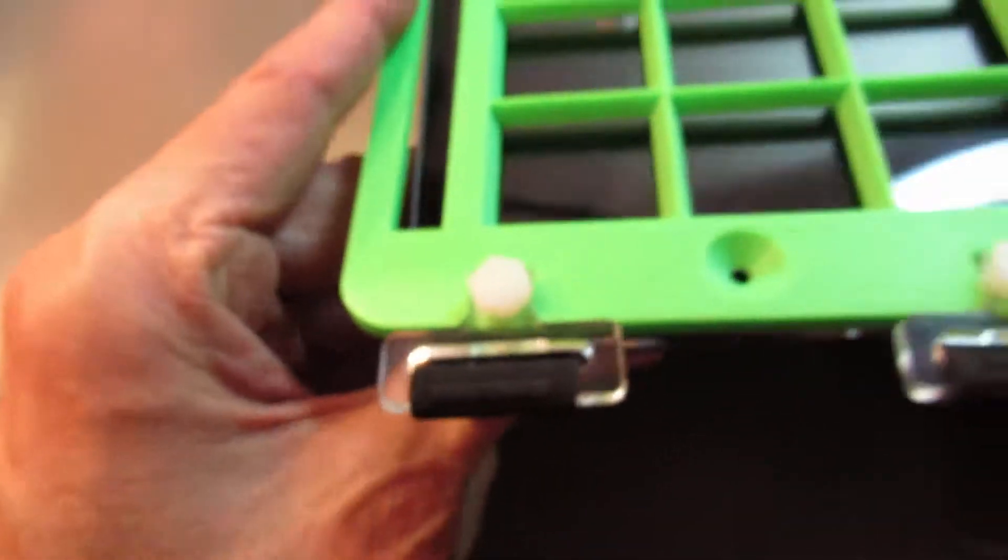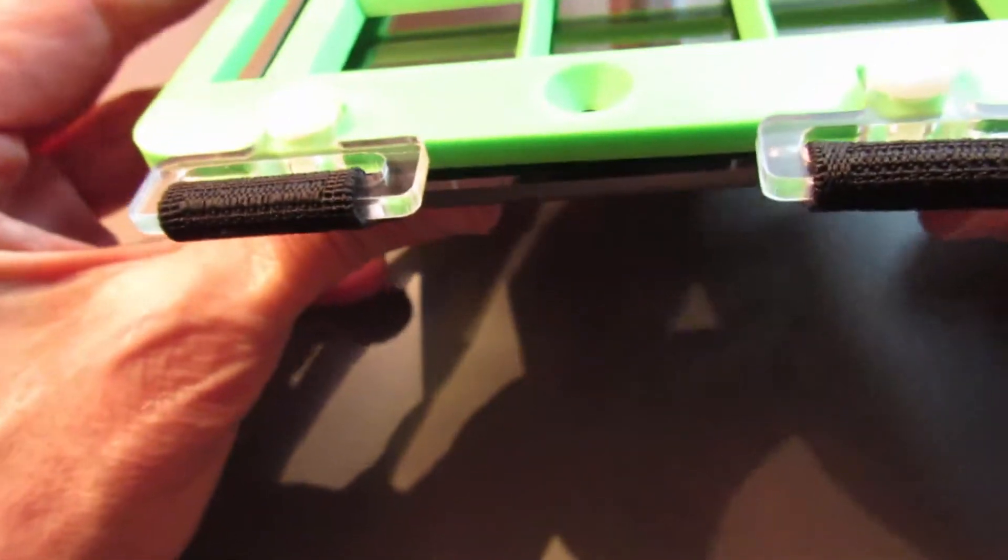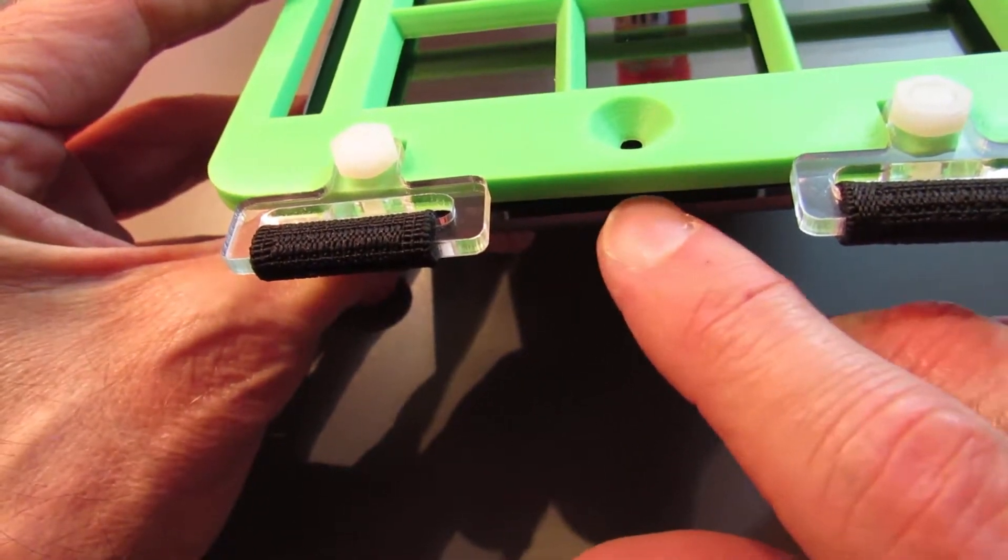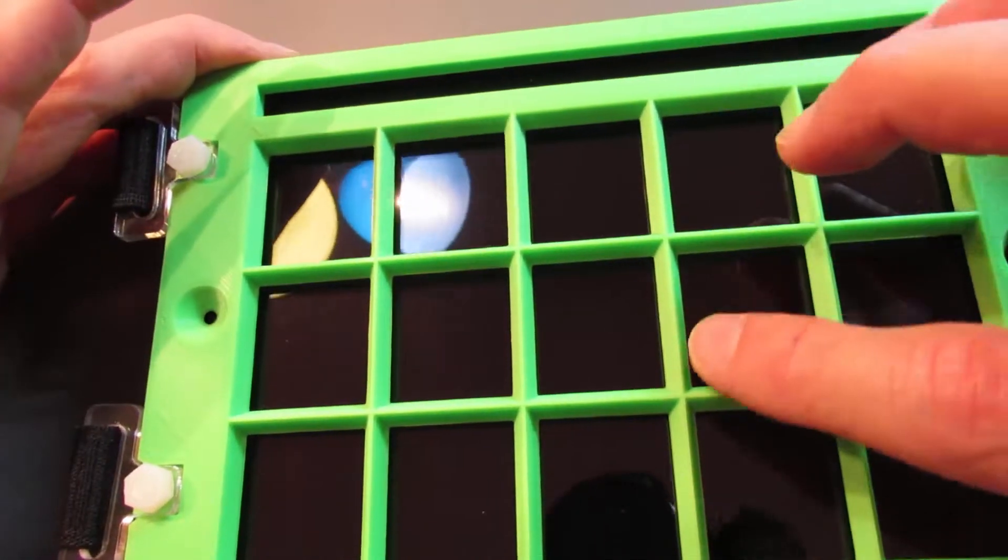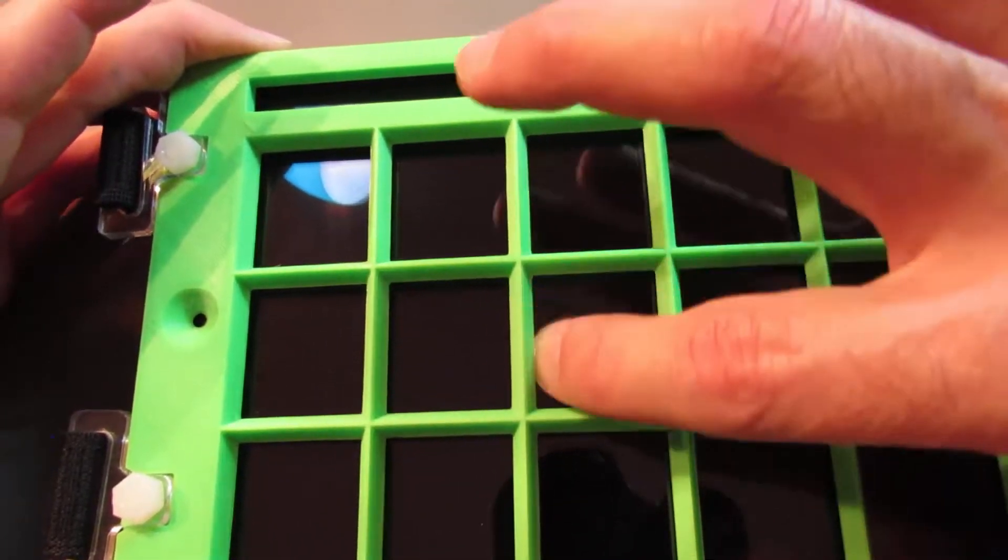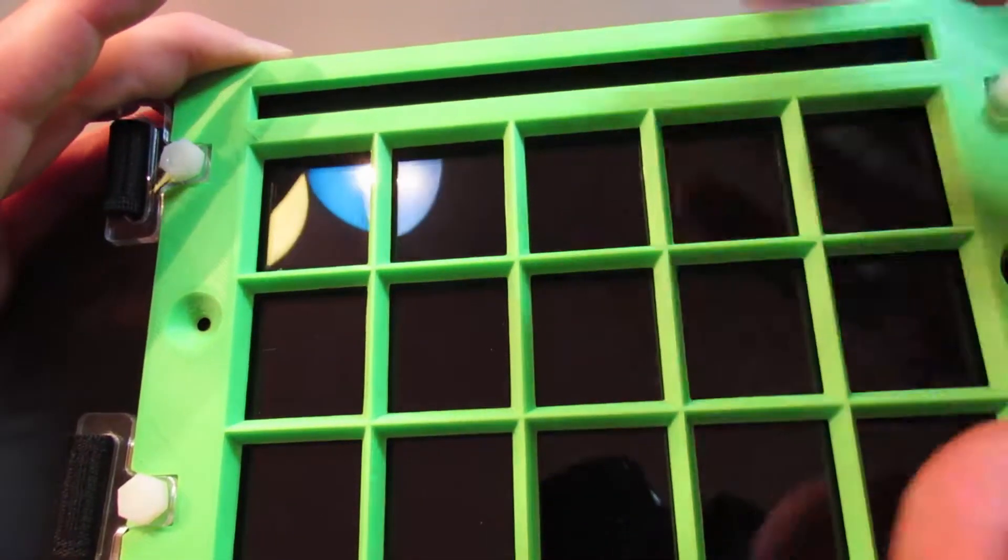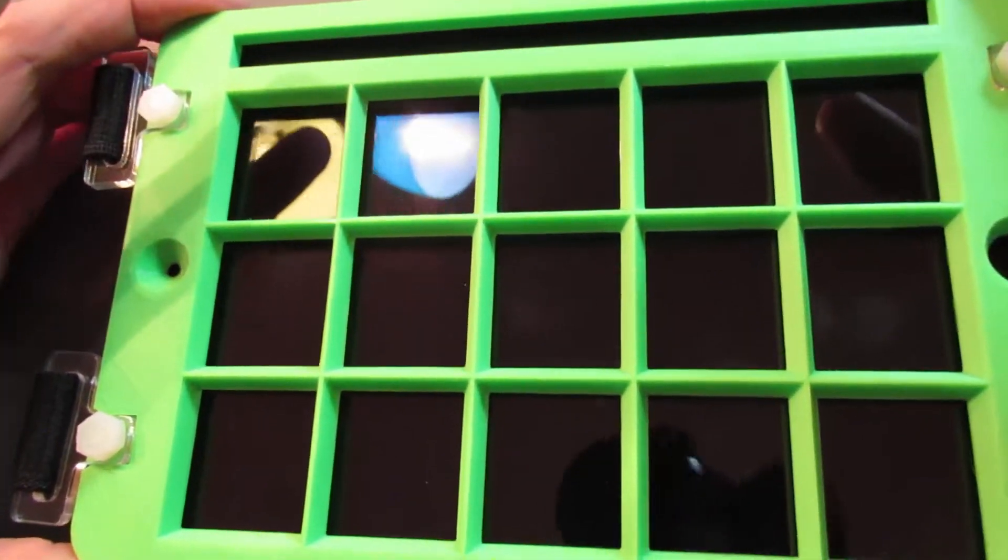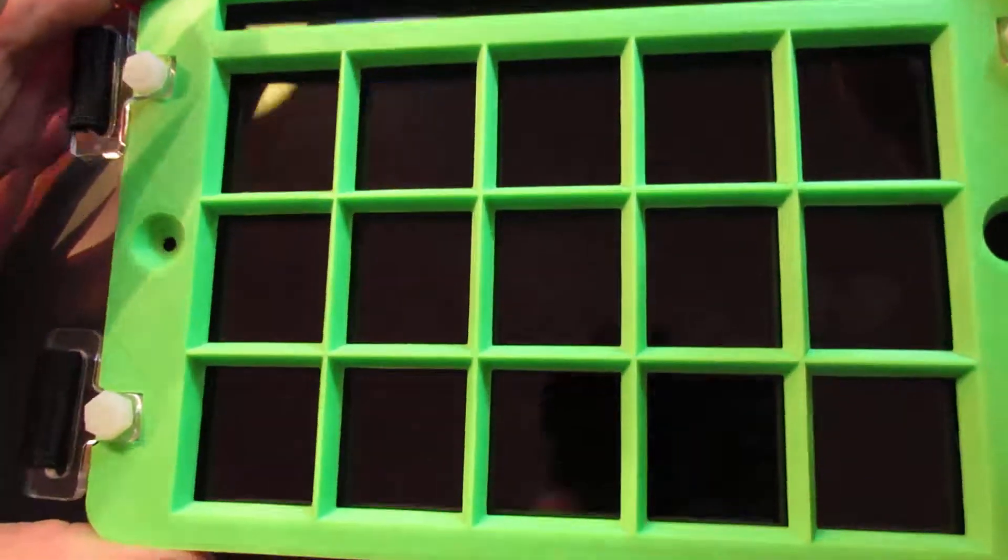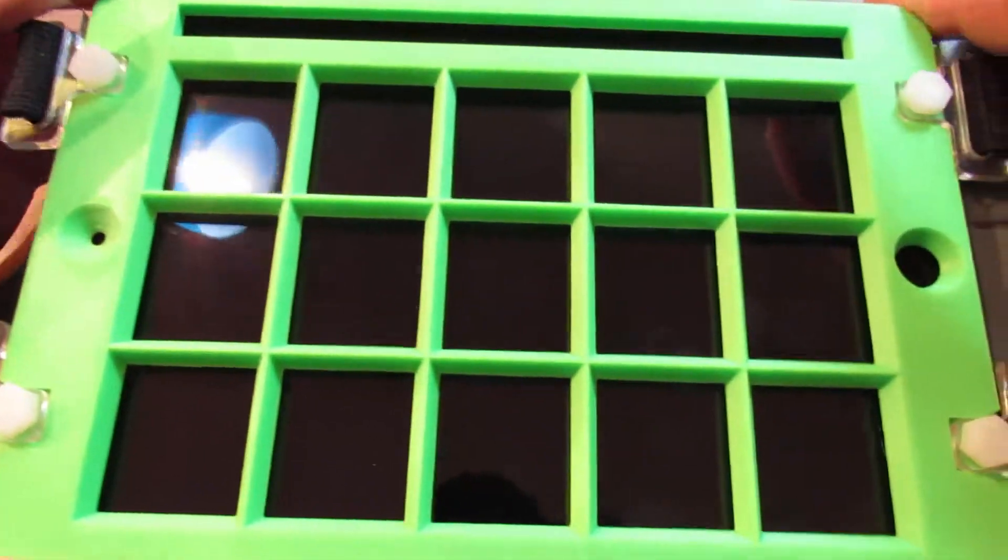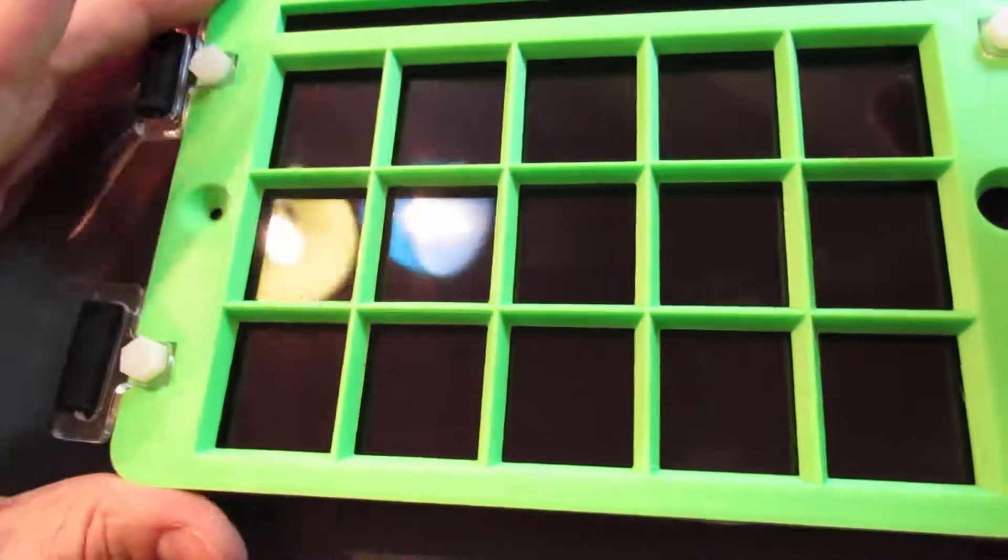The other advantage is, you may or may not be able to see this well, but the head of the screw has to sit between the surface of the key guard and the top of the tablet. So there is a gap in here. So if you are striving to have the key guard sit directly down on the surface of the tablet and not have any gaps, then again this is going to be an issue, but then so would the suction cups and the Velcro be issues. But the clip-on straps approach addresses that, and it addresses the instability aspect here.